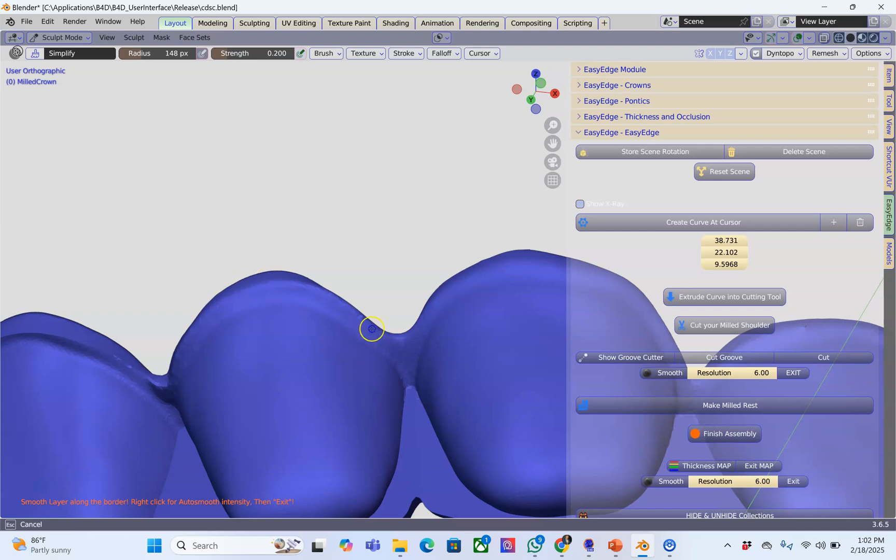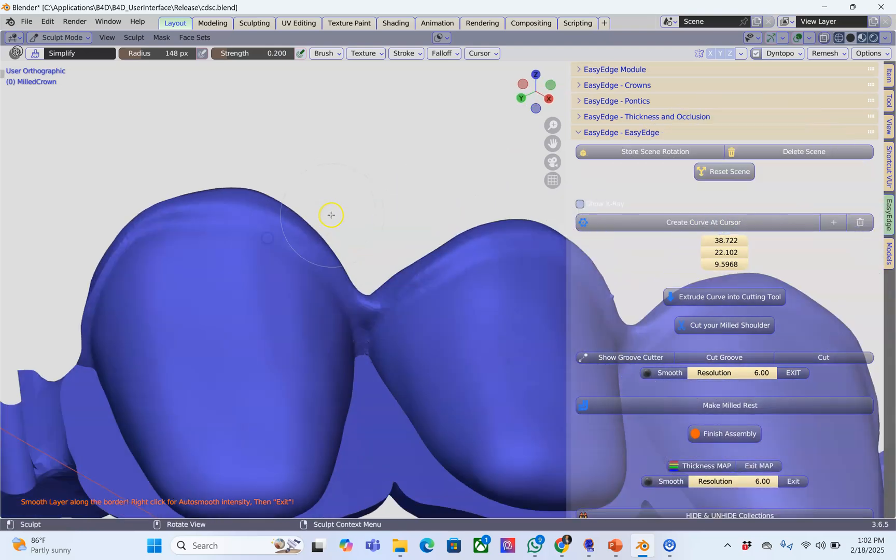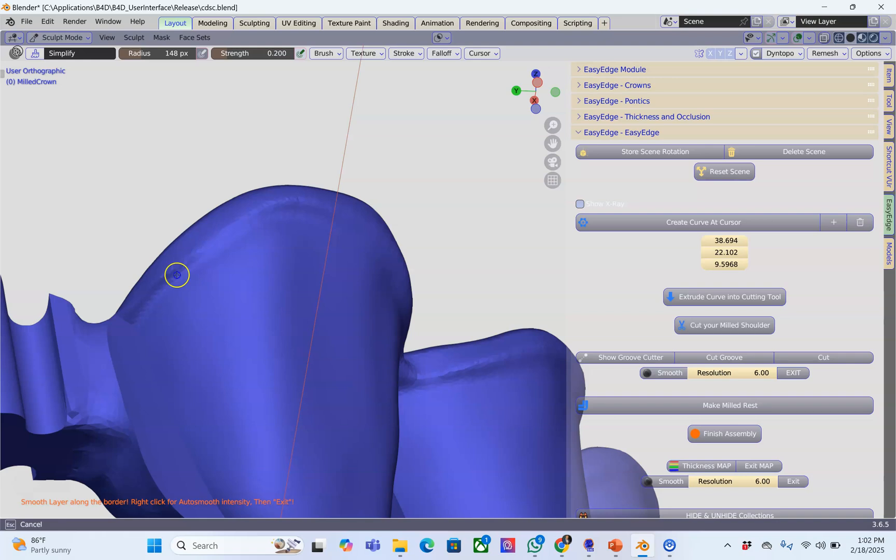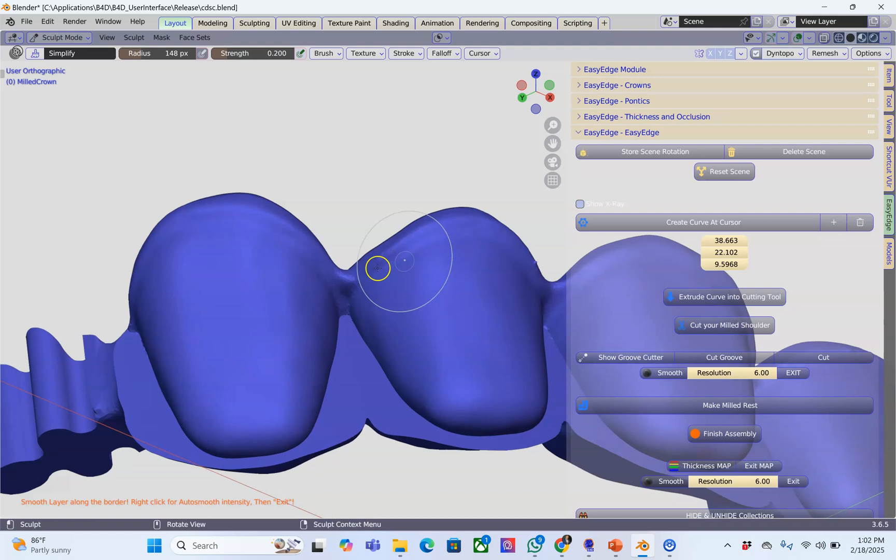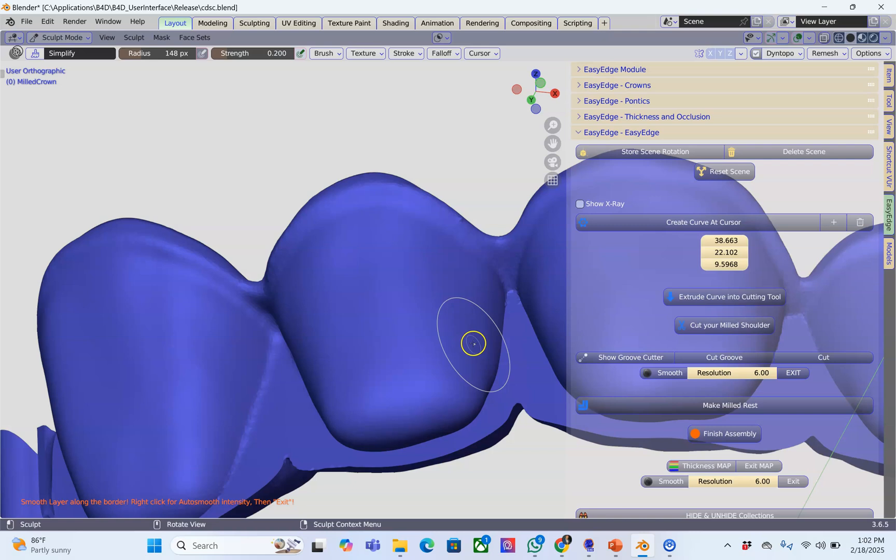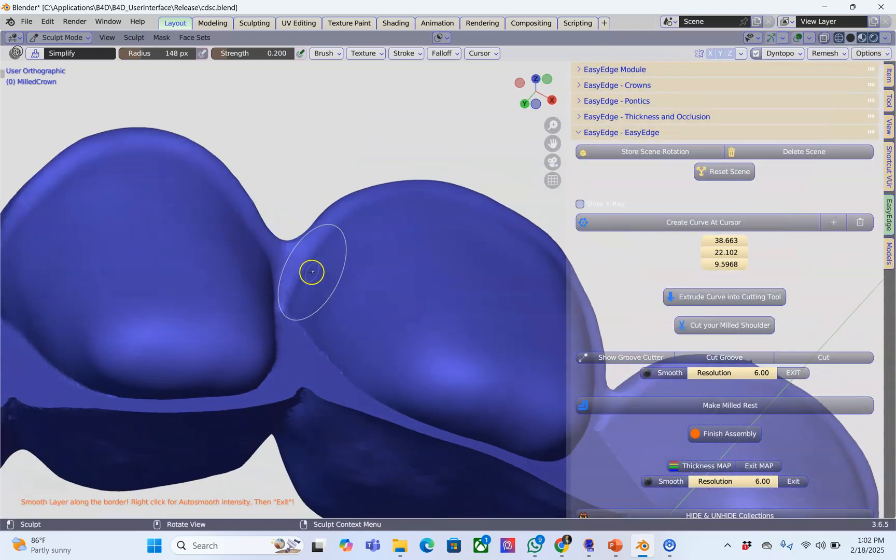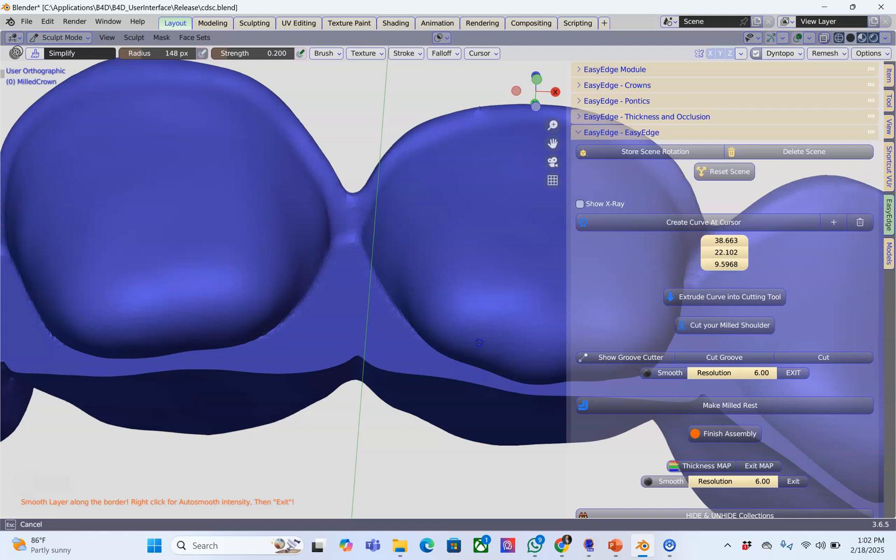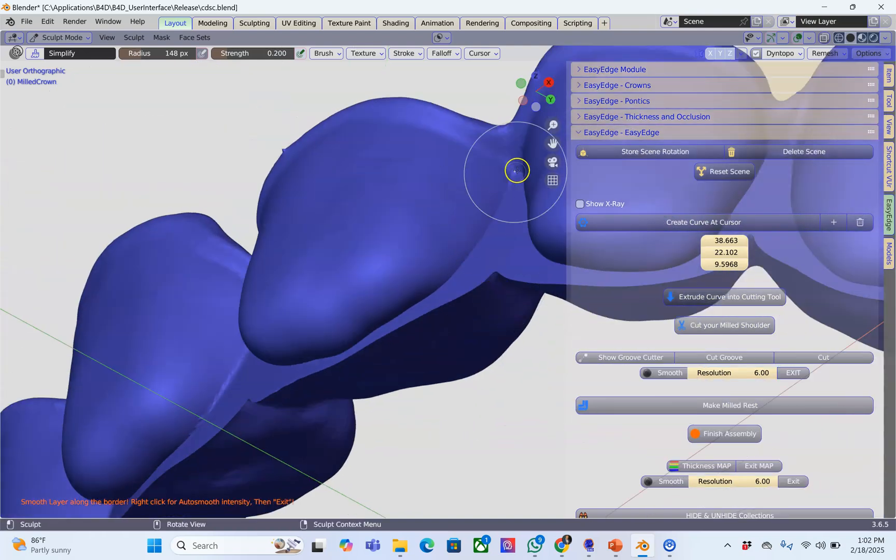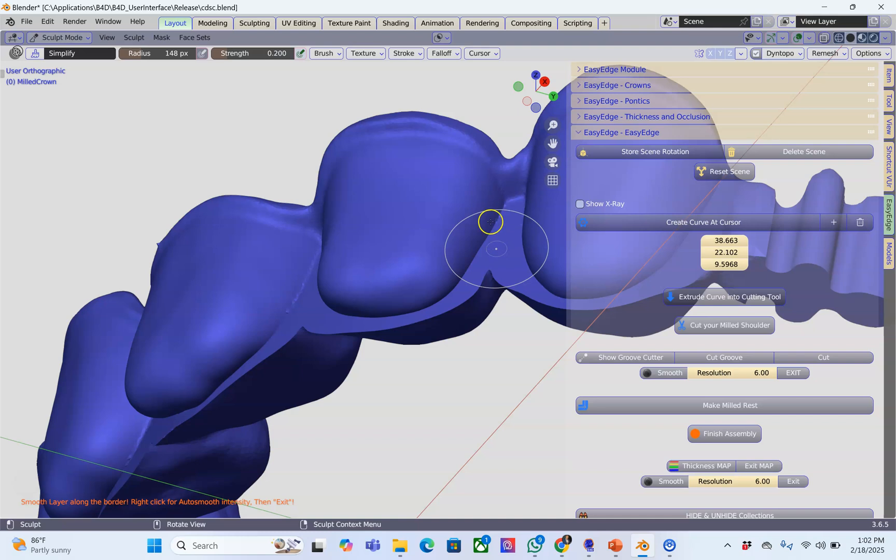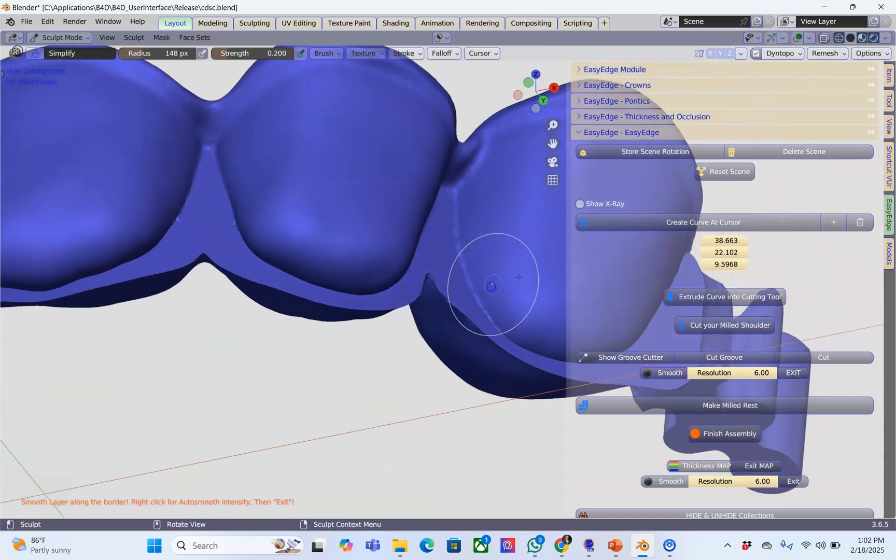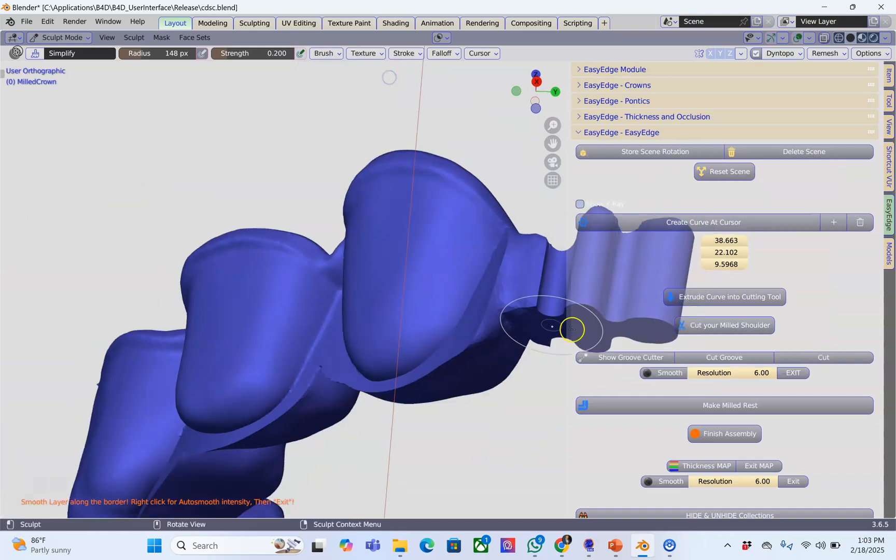You may wonder how we're going to get the other side. This is where the magic happens. I'll demonstrate in a minute. Here we've got it nicely smoothed down. Always think about smoothing sharp edges down because it makes the post-production way simpler and easier. I will go with that and leave the rest.